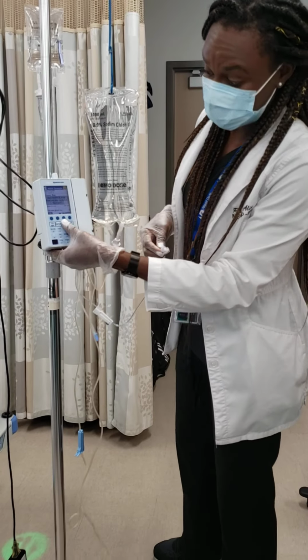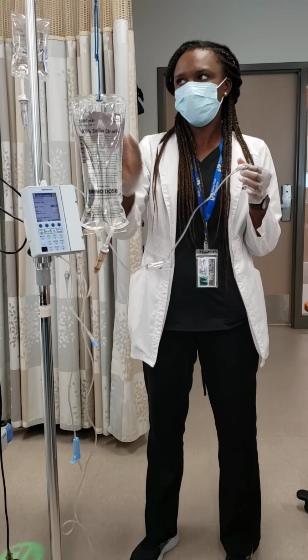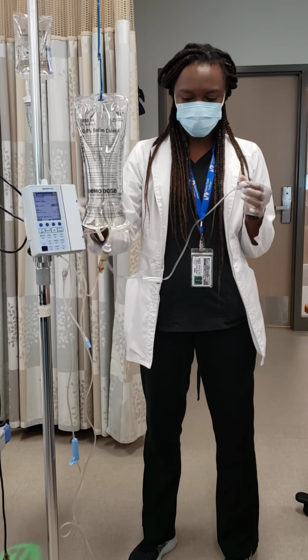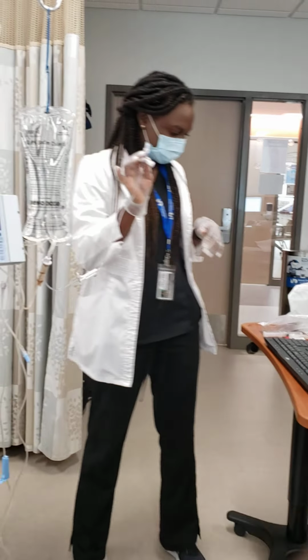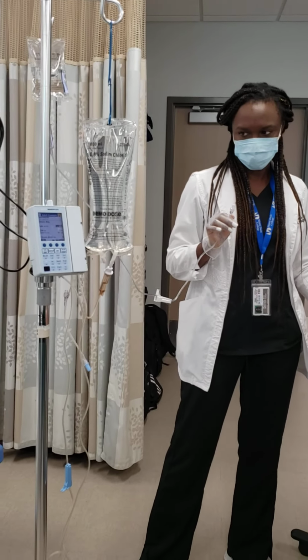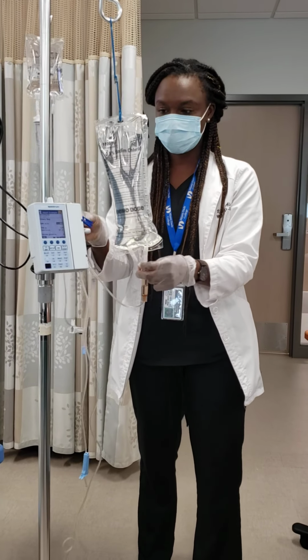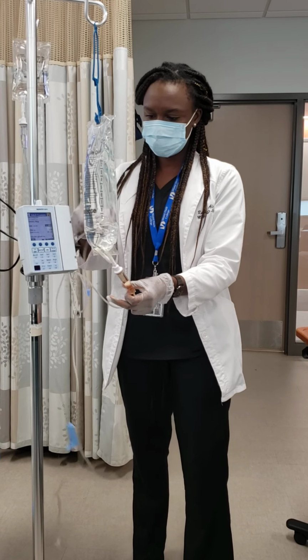Yes, and that's why I told you, don't mind the video. It's the easiest thing. All you do is the same thing you do for this one. You hang it, you spike it, and then you prime it, and then you clamp it. Are we going to connect it to the primary after the priming? Yes. So after you're done with that, how do we connect it to the primary, right? This is what you're going to have to know as well, because you have to do the secondary line, right?